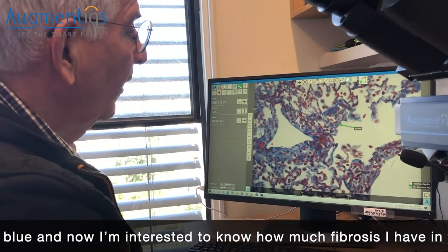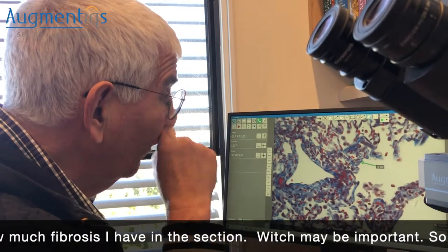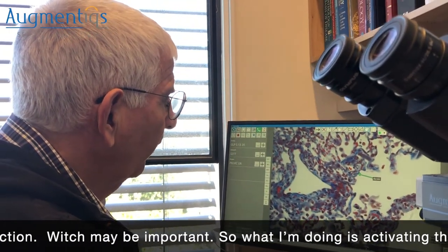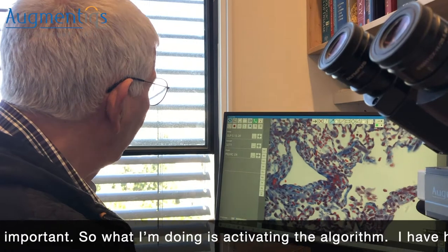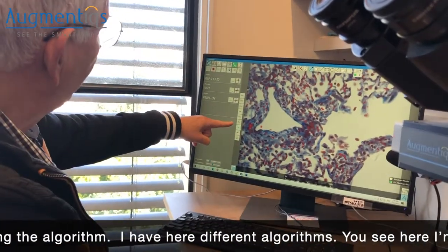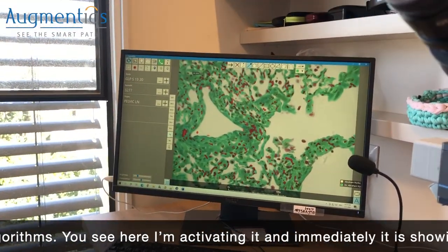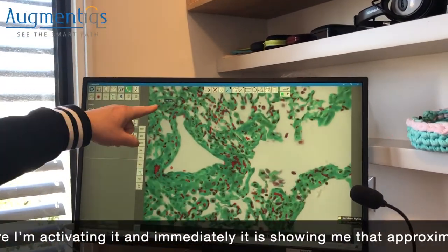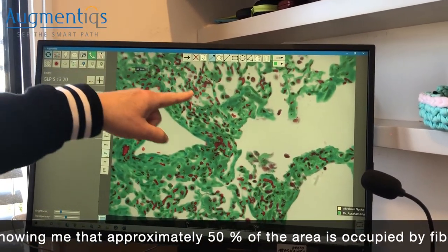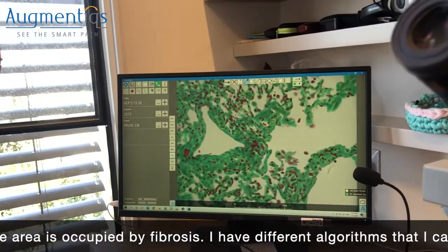You can see that the fibrosis is stained in blue. I'm interested to know how much fibrosis is present in this section, which may be important. I activate the algorithm, and immediately it shows me that approximately 50% of the area is occupied by fibrosis.